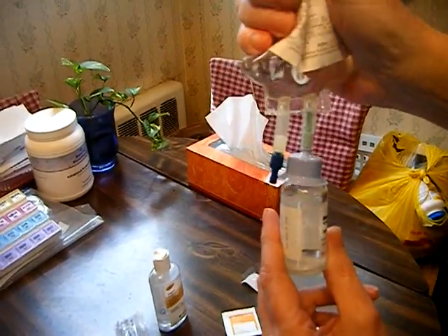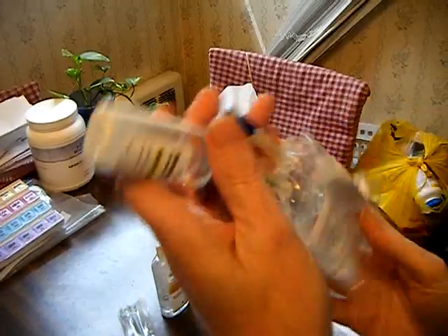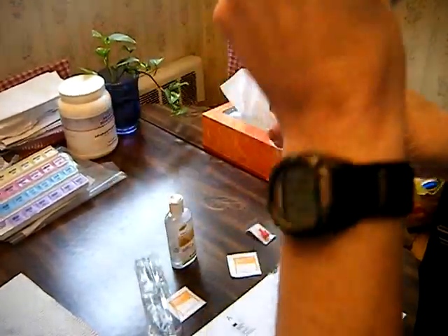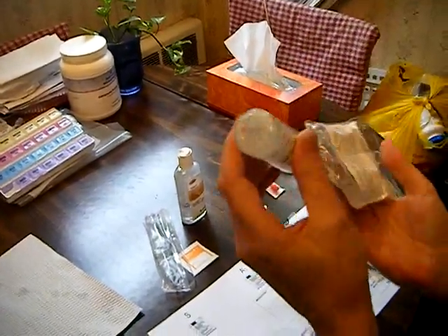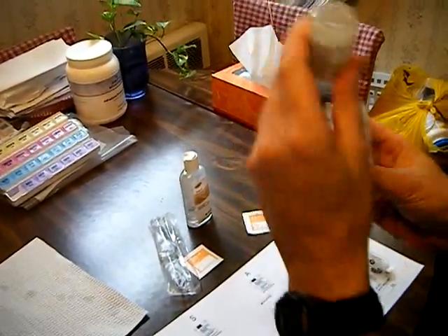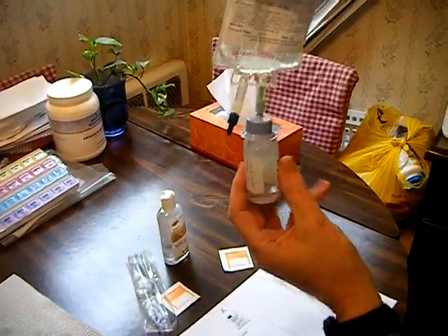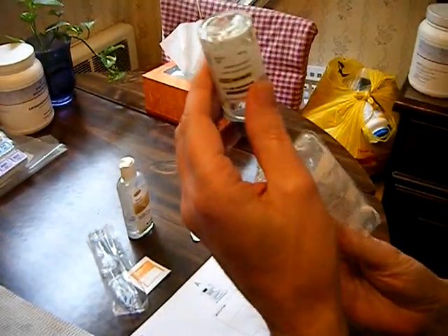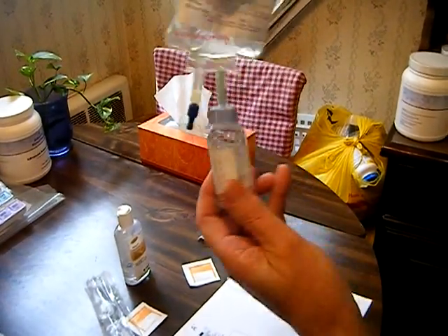Once we're done filling that — almost to the top — you want to leave a little air in there because we're going to shake it up now, like shake and bake. This way and that way until the medication, which was one solid powder, will become a semi-clear liquid. This will take maybe 20 to 30 seconds to assure that every last bit of that powdered medication has dissolved into the saline water. Always double check to make sure there are no Alka-Seltzer-like pellets at the bottom. So we have a semi-clear liquid — that's our medication.